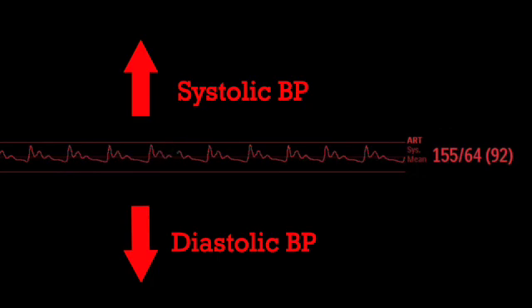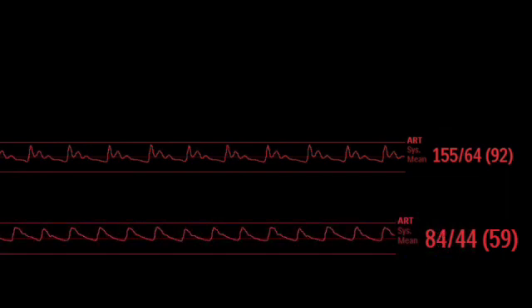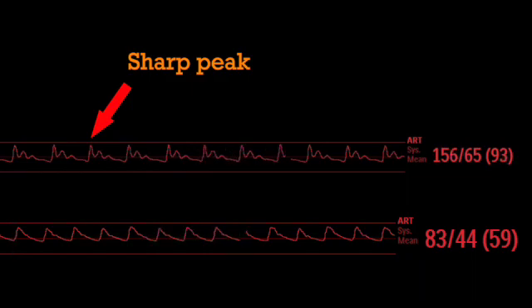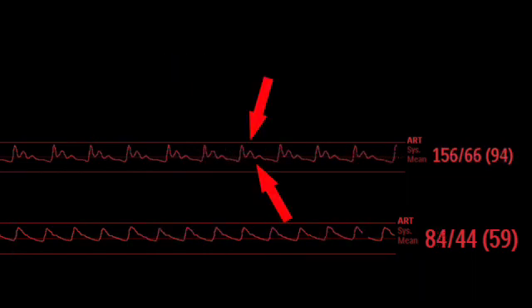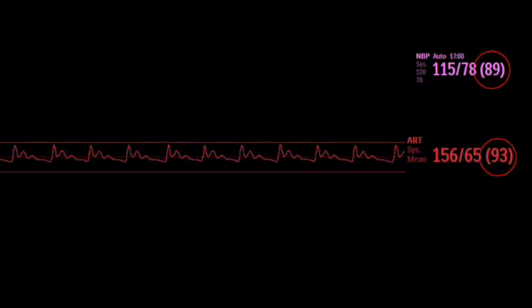So how do you decide if your hypertensive patient actually has arterial line whip and doesn't need intervention? Compared to a normal tracing, the whippy arterial line will have a faster rise and fall, without the more typical rounded appearance at the peak. And on the downslope, there are multiple oscillations rather than one notch, and they can be deep. Since whip is a problem with the equipment, not the patient, the cuff pressure should be accurate. And while the systolic and diastolic pressures are not to be trusted, the mean arterial pressure usually can be.